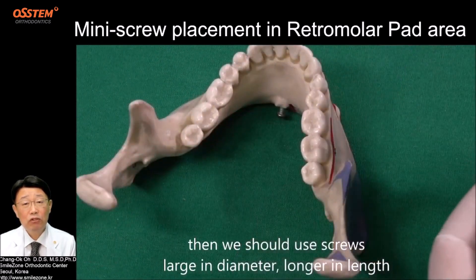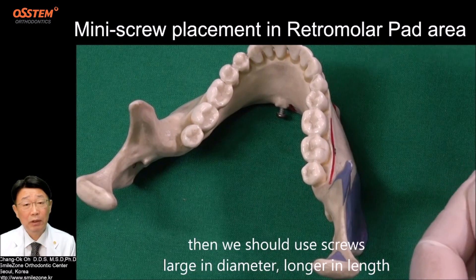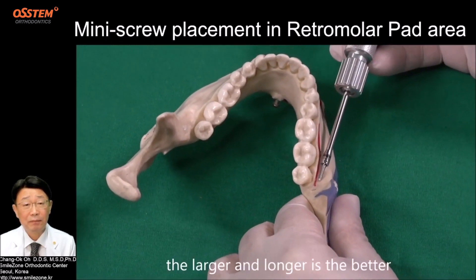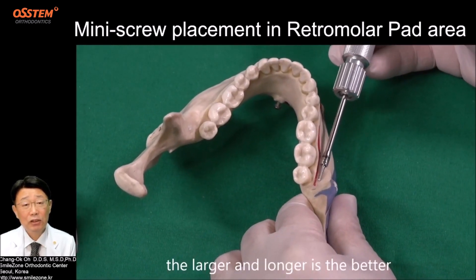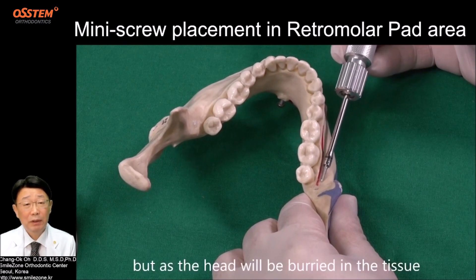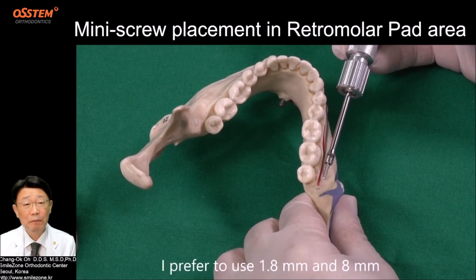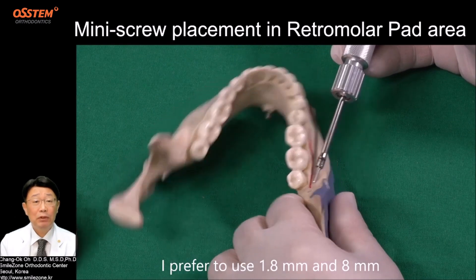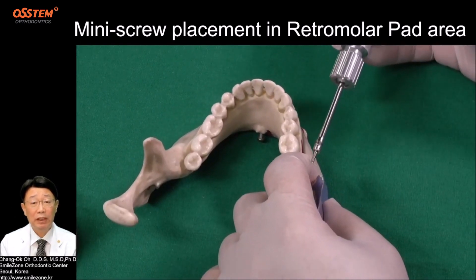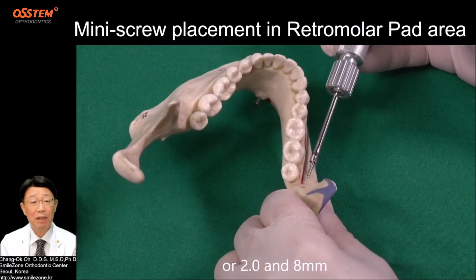Then we should use screws that are large in diameter and longer in length. The larger and longer the better. But as the head will be buried in the tissue, I prefer to use 1.8mm diameter and 8mm length, or 2.0mm and 8mm.